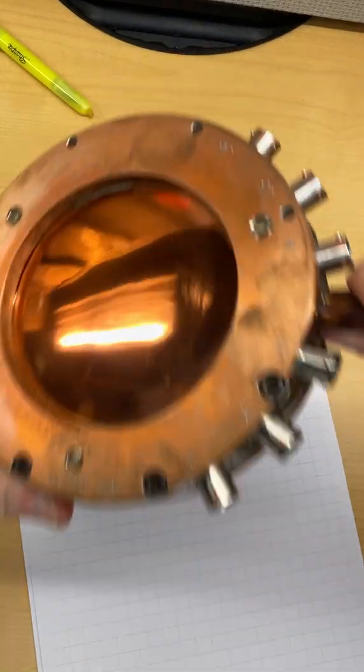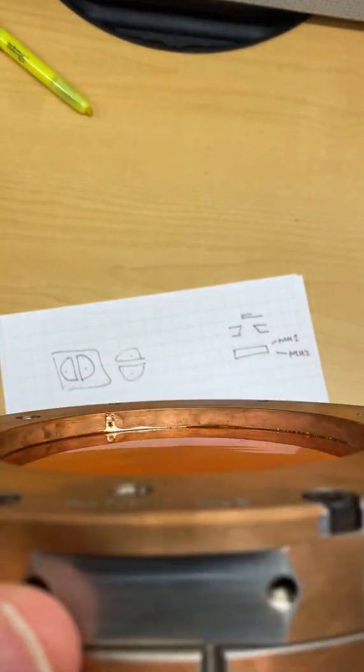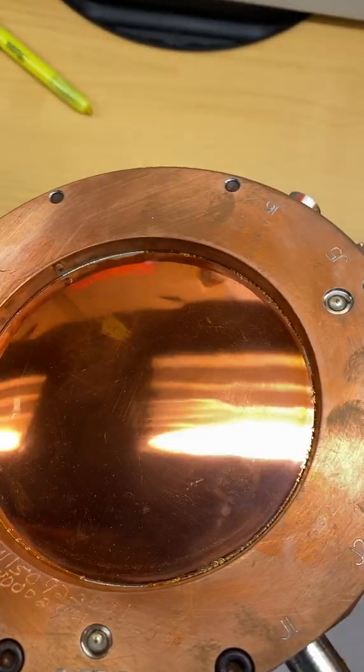Contrast that with this one. I think if you look at this one on edge - let me stand up so I can see - I think you can see this is bulging out a little bit. Can you tell that this is bulging out? This is over-pressurized. This monitor unit chamber is over-pressurized. It's sealed at the factory.